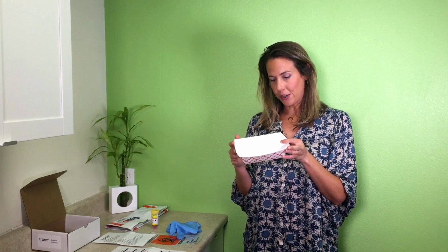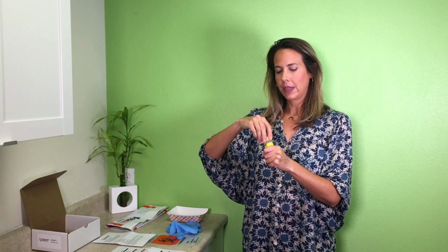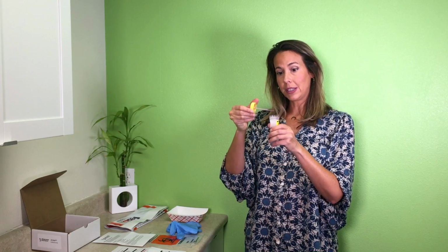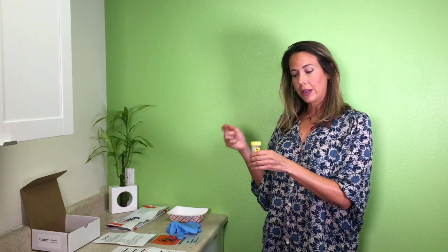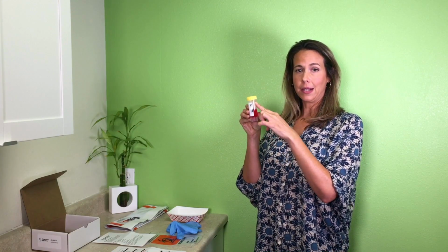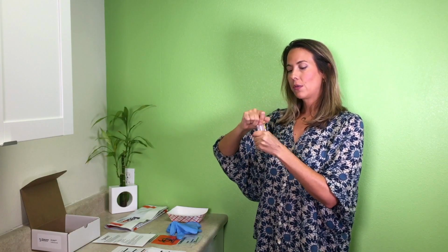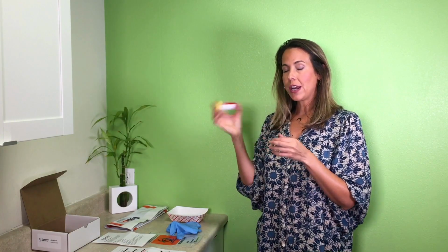Okay, so you're ready to collect. Collect your stool sample in this collection container, and then you're going to open this yellow capped vial, and use the spoon that's attached to it to transport the stool into the vial. Make sure it's filled all the way to the top line, which is labeled there for you, okay? You close this really tightly and you want to shake vigorously for 30 seconds.